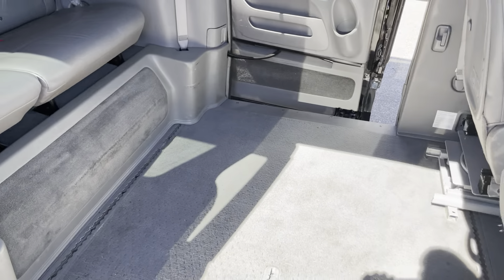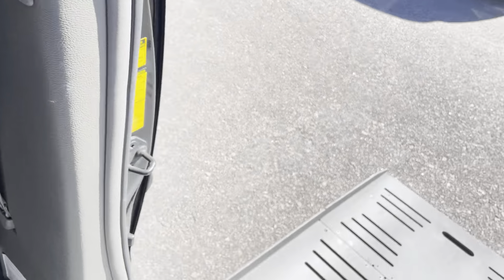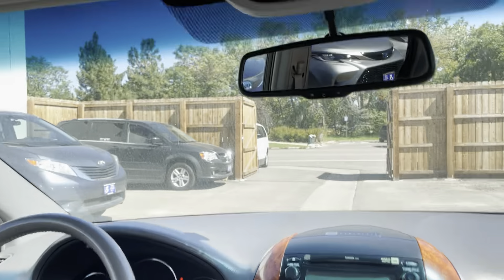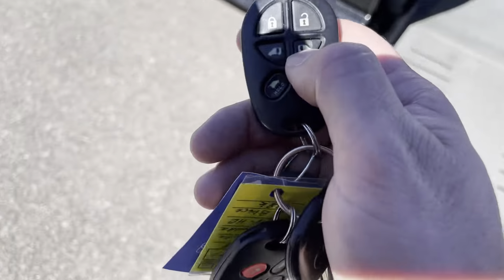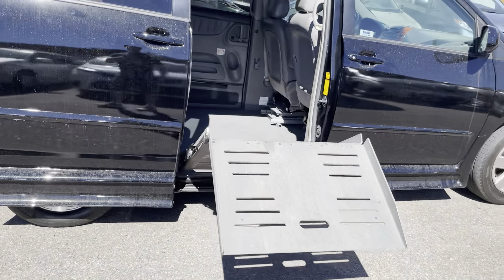When you're ready to exit the vehicle, you can hit the interior door buttons — there's one here, an additional one there, buttons up here, and they even put one right next to the steering column, so when you're exiting it's easy to use. Otherwise, you can always use the key fob button, giving a good two-and-a-half-second press for that.